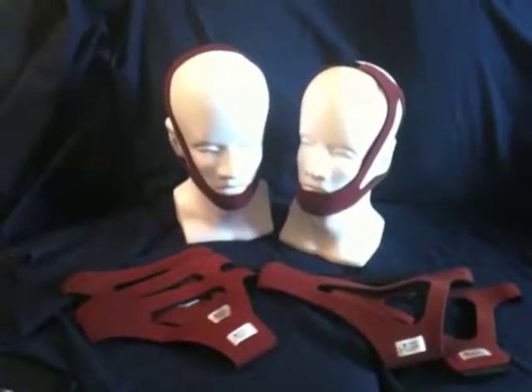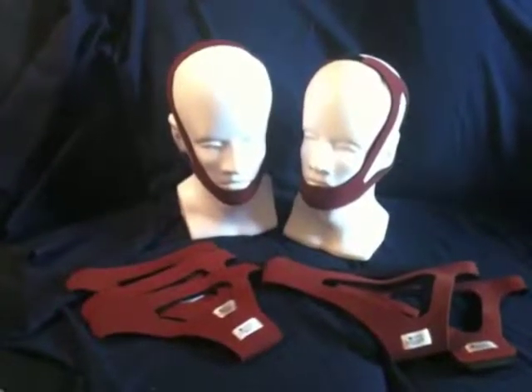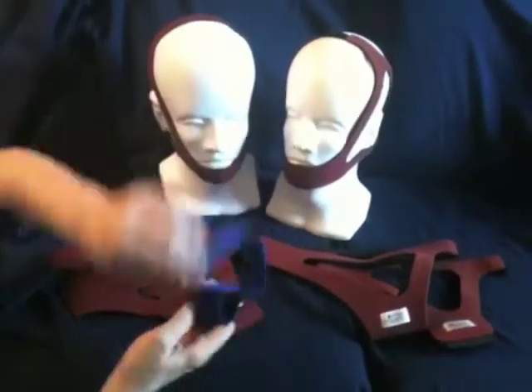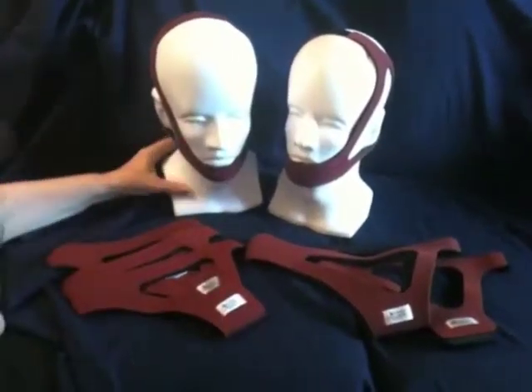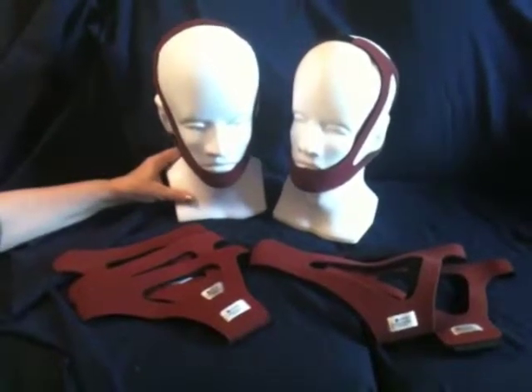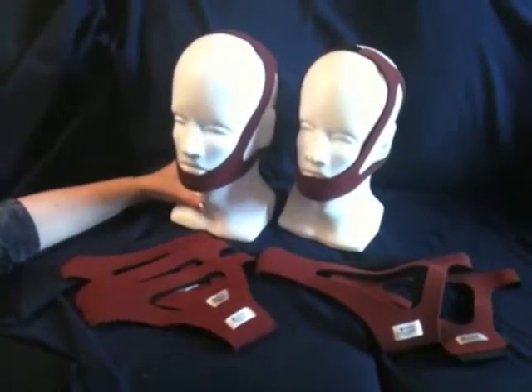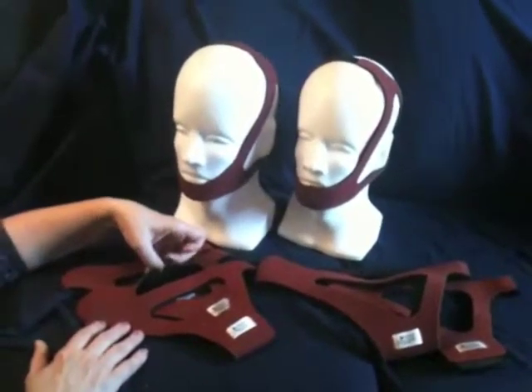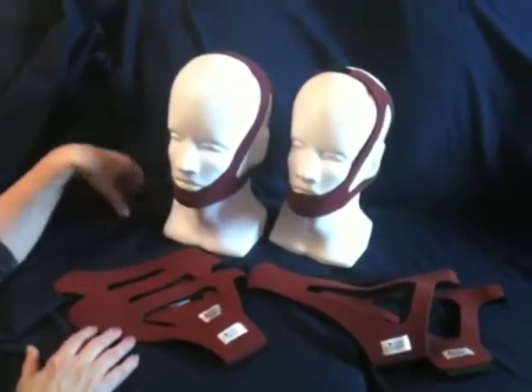Selecting a chin strap, there are a variety of different styles available for CPAP users, the most common being the Simple Strap, which often slips off during the night. The Ruby Chin Strap is designed for patient comfort and a dependable, secure fit. It's made of a fabric called Breathaprine, which also has an antimicrobial SilverTech lining and it inhibits the growth of bacteria.